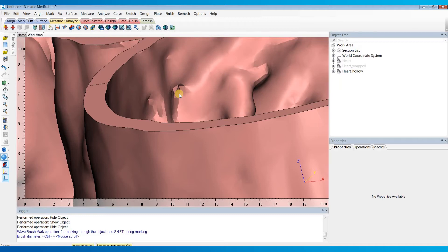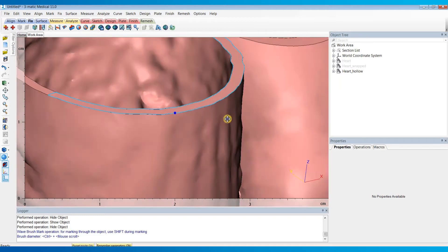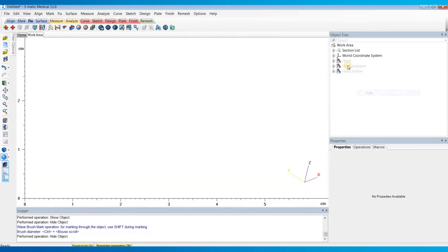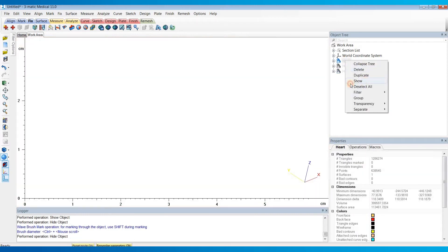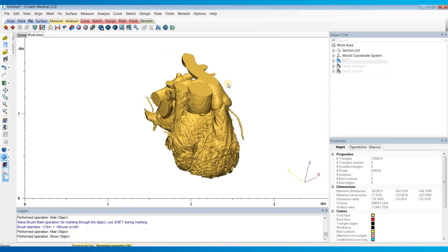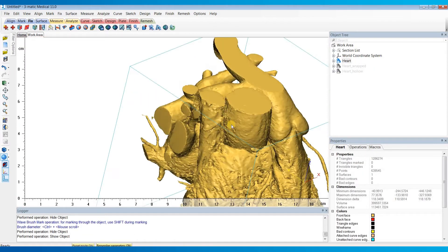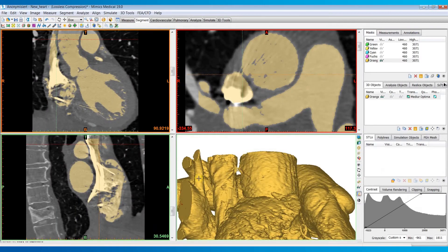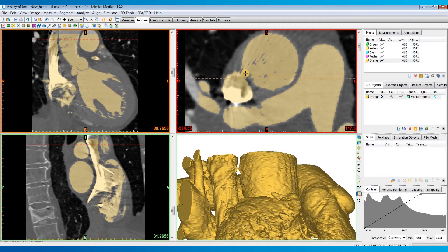First is if you over-segment in that region. If we look at the original 3D model that was calculated, you'll see that there's a connection between this SVC and the aorta. And if we look at our segmentation, you'll see this connection in the mask level as well.